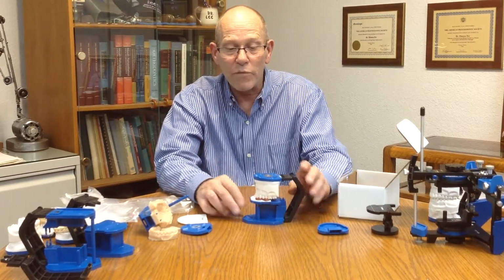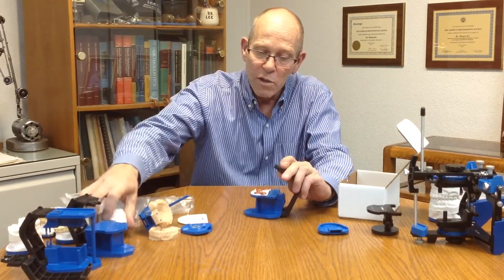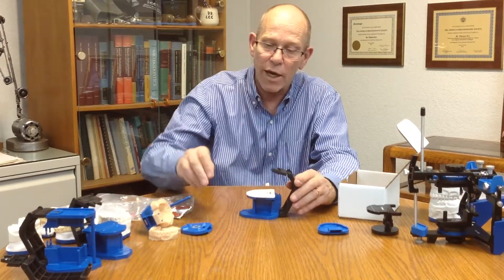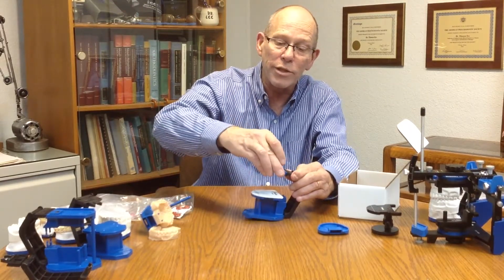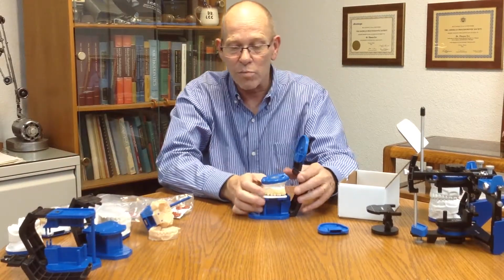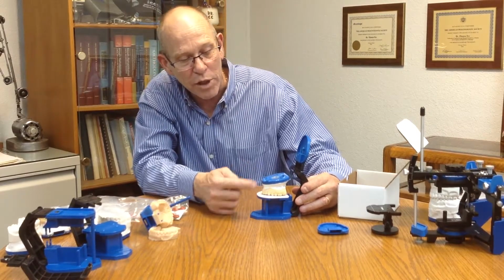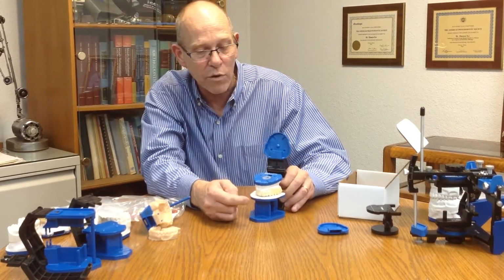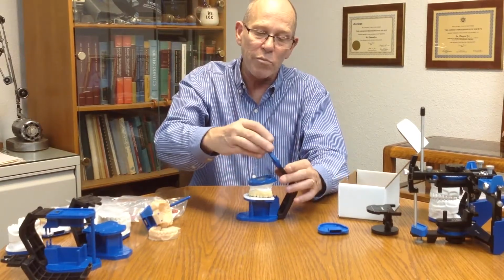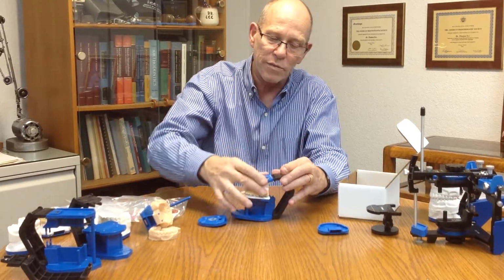Now if you want to do a standard functional mounting, we can do that also by removing the COI index tray, adding a standard waxing guide, and again adding a mounting plate to the upper. We can then take a model and set that onto the COI platform with the incisal edge at the 100mm line and the dental midline on the midline of the platform. We can add plaster to the mounting plate and the model, swing this around and make a connection to the model, which will then look like this.